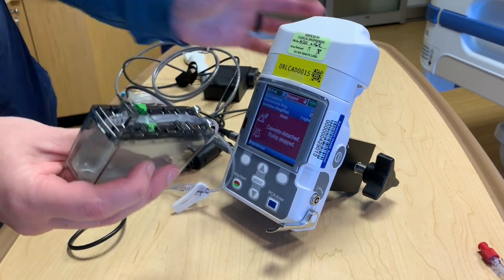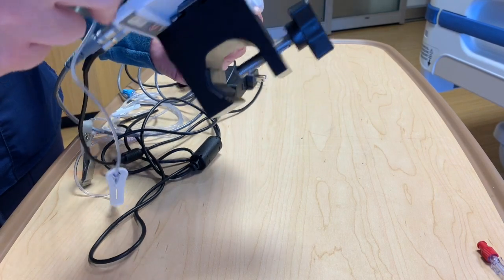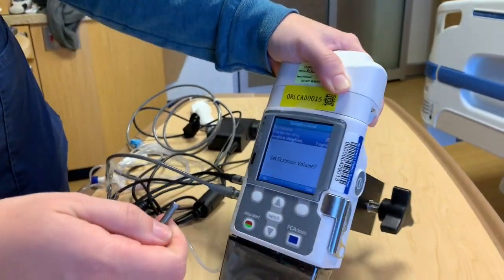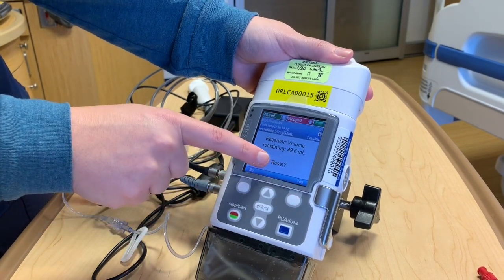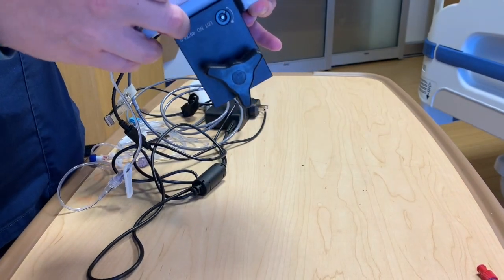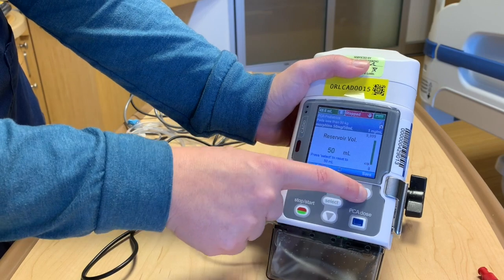For your new cartridge, you'll see underneath there's a little notch — you'll simply hook in here, and then this notches in. Then you would pull your lever up and re-lock your CAD pump. It'll say set reservoir volume, and at that time you can see it says the reservoir volume remaining is 49.6 ml. It's asking if you want to reset it — you can say yes, enter the code, and if it was truly 50 ml you can go up and change it to 50 and push save.